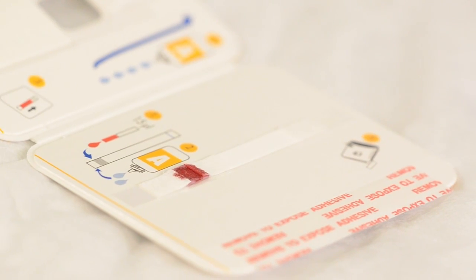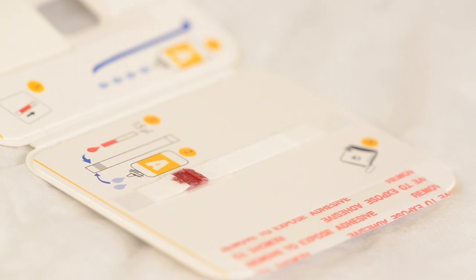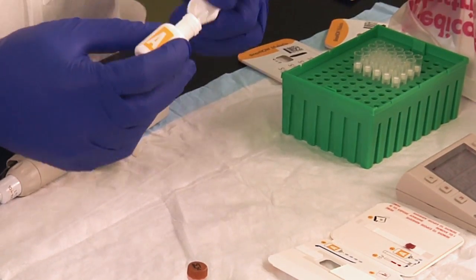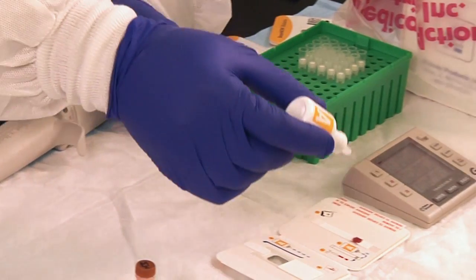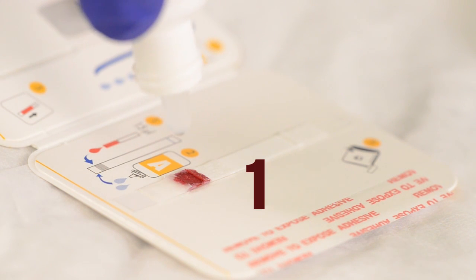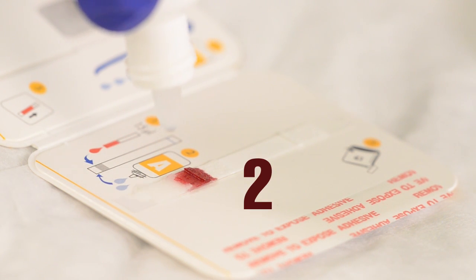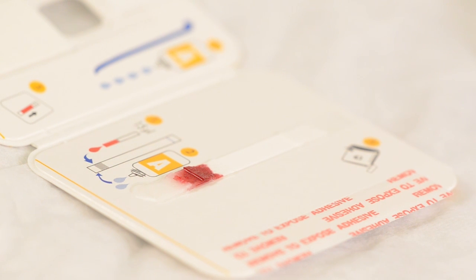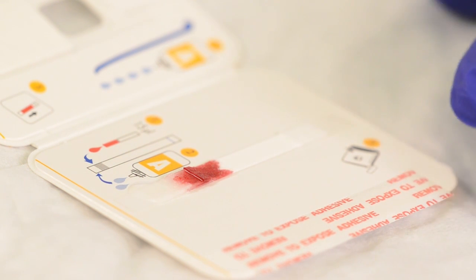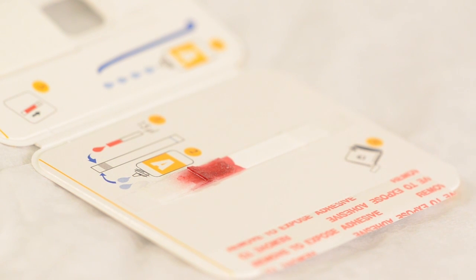After you have added the blood to the test device, it's time to add reagent A. Holding the bottle vertically, add two free-falling drops to the white pad that is immediately below the purple pad. Allow the first drop to absorb into the pad before adding the second drop. Do not add reagent A to the purple pad.